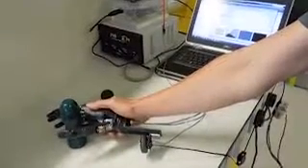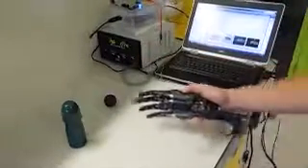The open and close functions are controlled by a pair of mechanomyogram sensors attached to the opposite arm. The system makes use of the two main grasp patterns with an opposed thumb: pinch and power grasp. These are used to grasp small and large objects respectively.